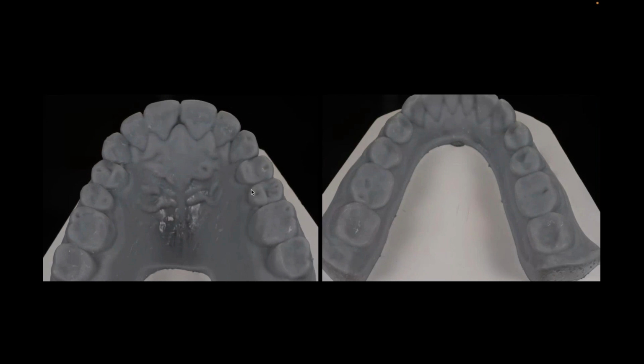She actually wanted a very monolithic, whiter tooth. So I did have the freedom to treat it, but I also know she wanted a brighter, whiter tooth. So I felt more comfortable going with a monolithic onlay in the posteriors and a layered veneer in the anterior, both on the maxillary and the mandible.